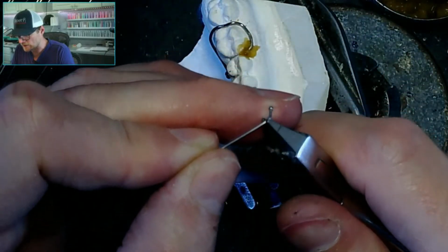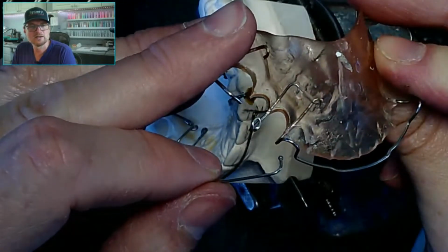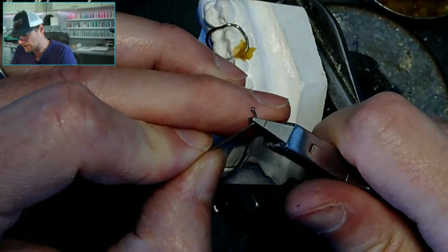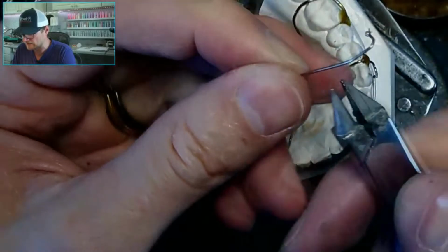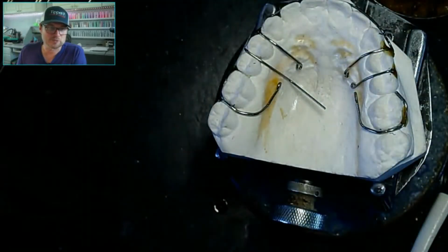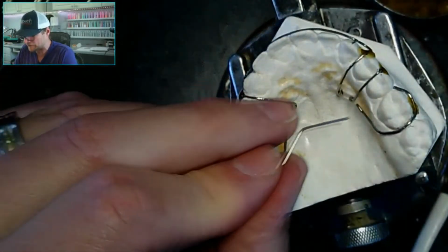And I think that's why this one has an arrow clasp on one side, if you can see that. Because I think we got the model and the instructions from our lab school instructor, Dr. Anthony, and he threw that in there just to see if anybody's reading them. It was great. The way they trained us in lab school, they would give us fake prescriptions, and the names on the prescriptions would be like David Schwimmer or Monica Geller, the ones I remember. They were all friends, Brad Pitt or something.